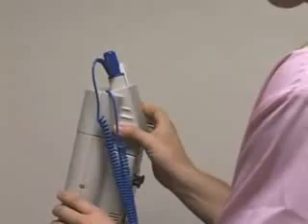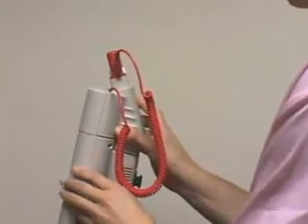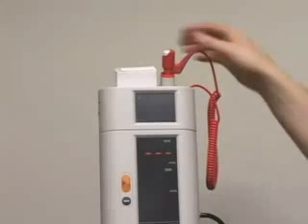To take a temperature measurement with a rectal thermometer, remove the oral axillary unit and replace it with the rectal unit. The ADVIEW 9000 will recognize the new unit and will beep when ready for use.